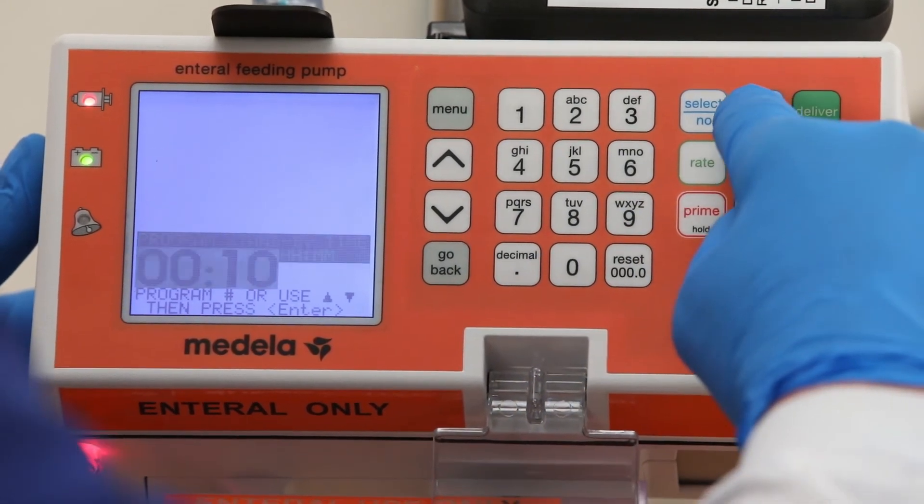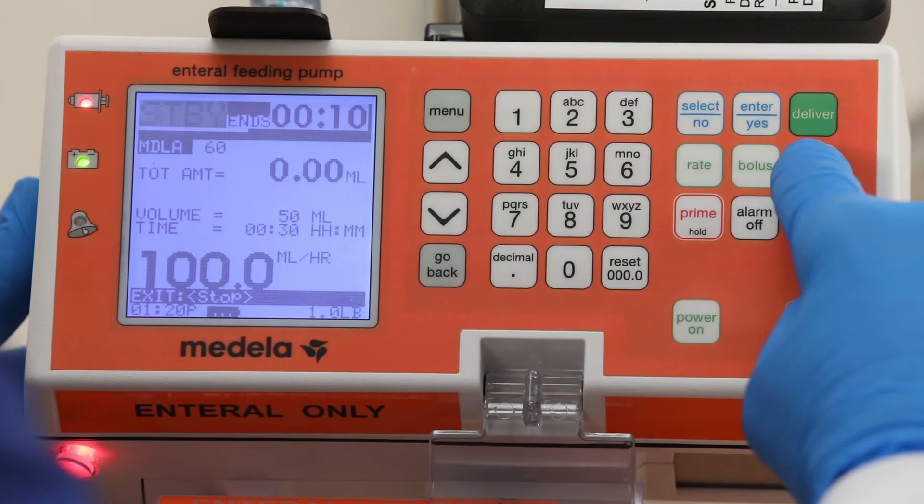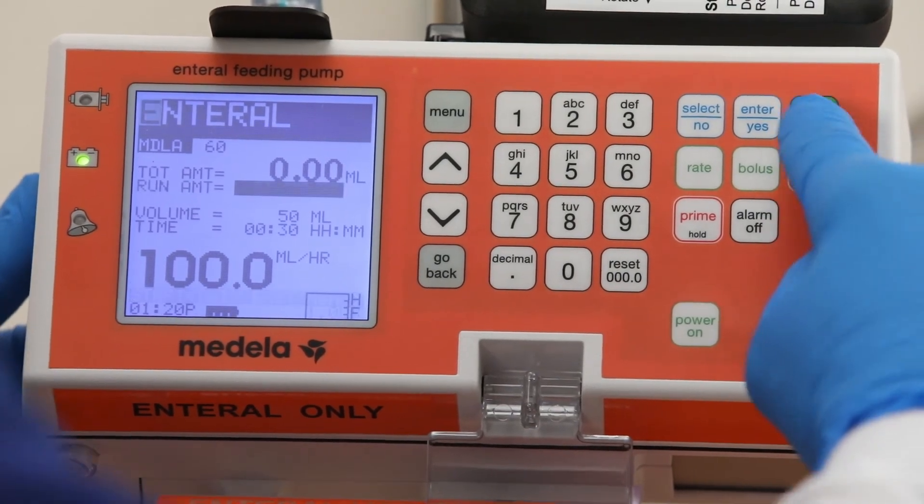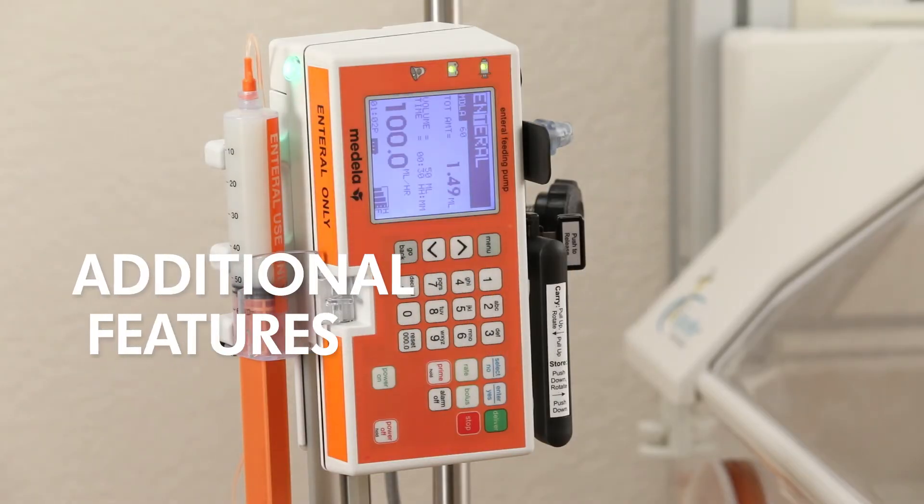If you decide to start early, select the stop button and then deliver in order to start the feed.